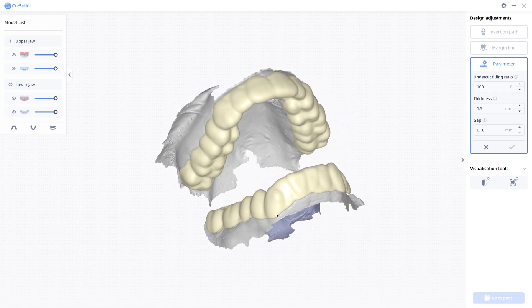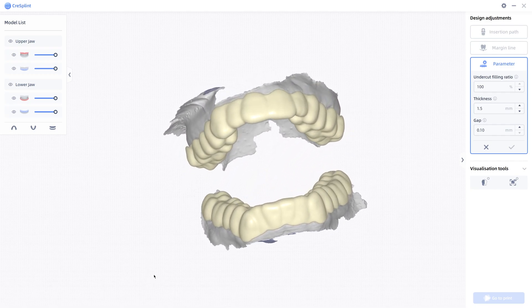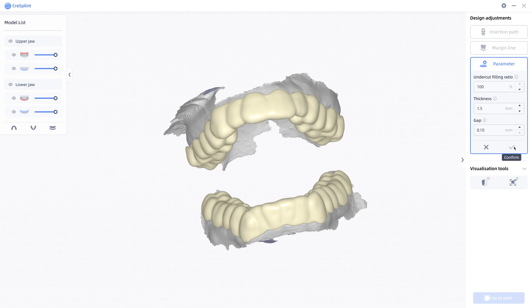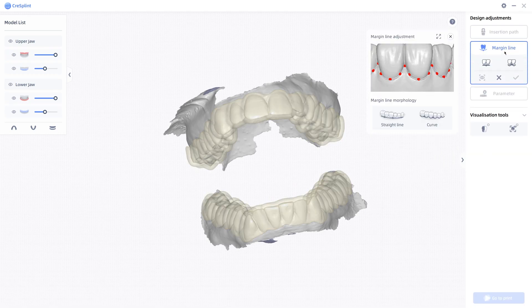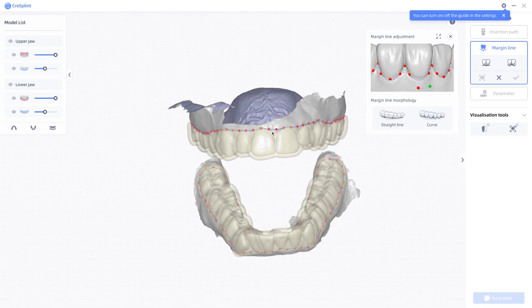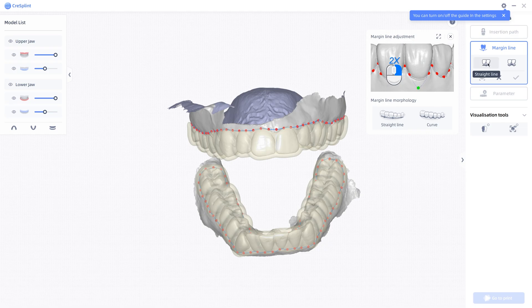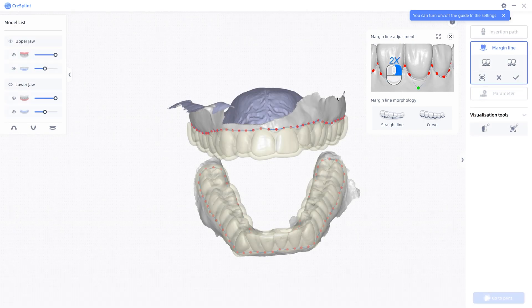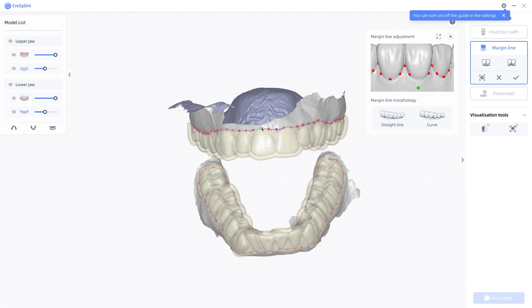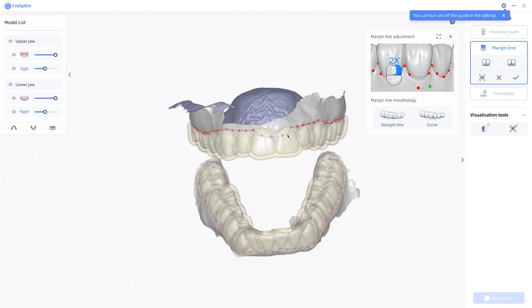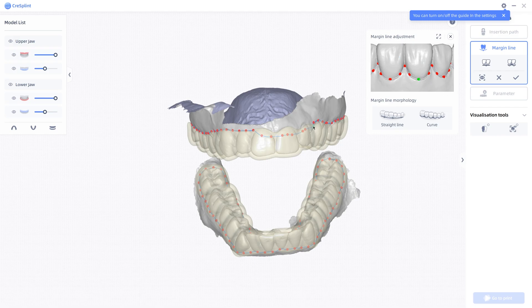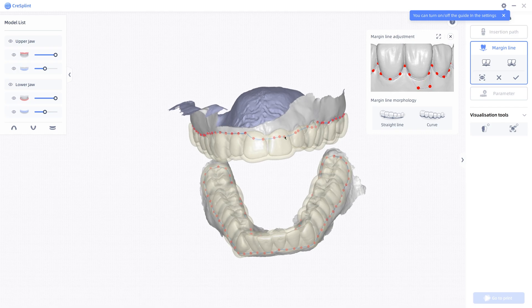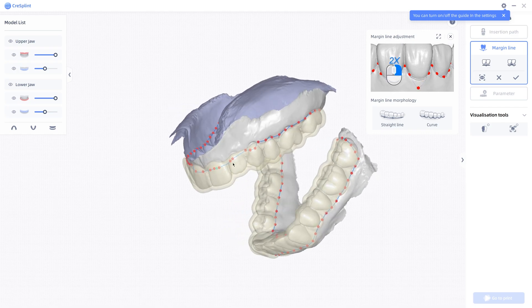If you don't like how low it brought everything, you can adjust the margin line. So like, you could take this and you could lower these. You can even mess around with how it generated it to begin with. So if you're doing this right, you just drag all these dots down. Kind of all based on if you don't like how that cut was for the fit. Right click to move your model around.